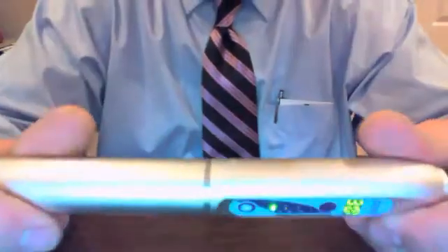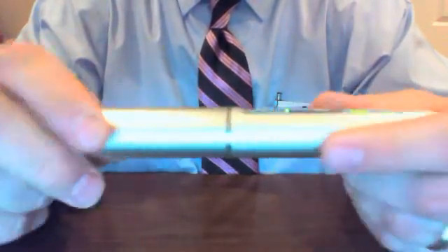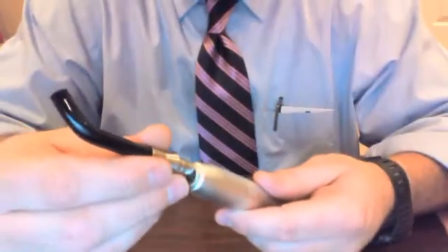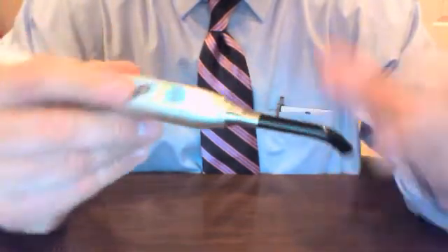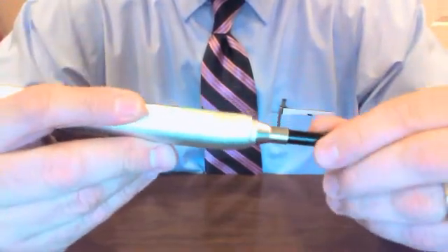This is our digital display — the brains behind the CureFX — which screws onto the battery pack, and you'll notice it boots up as soon as you put the two together. The machine workmanship is very good, and it screws on nice and tight with a really good feel to it. The light guide sucks down and fits very, very snug onto the CureFX. What's really unique about it is you can move it around — most clinicians want to see the digital readout and countdown timer, so they can maneuver the light guide however they deem appropriate.